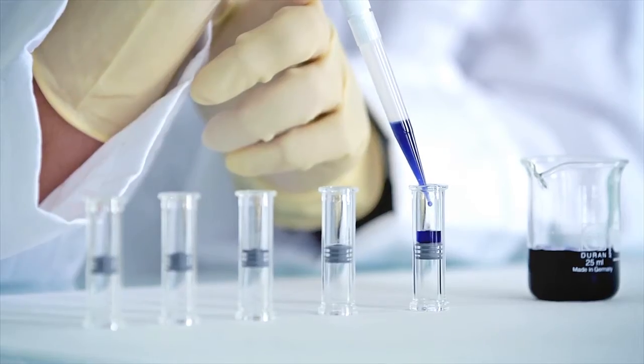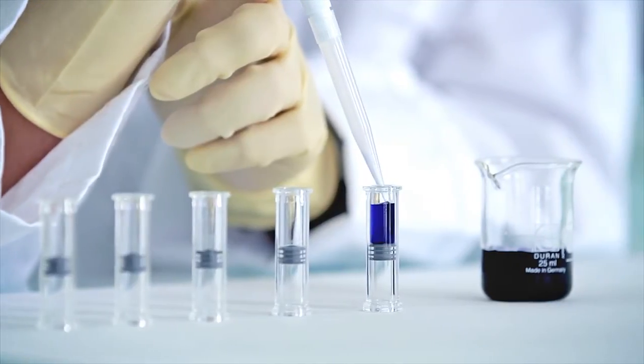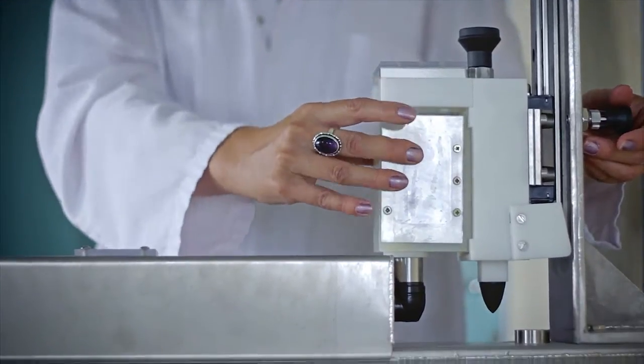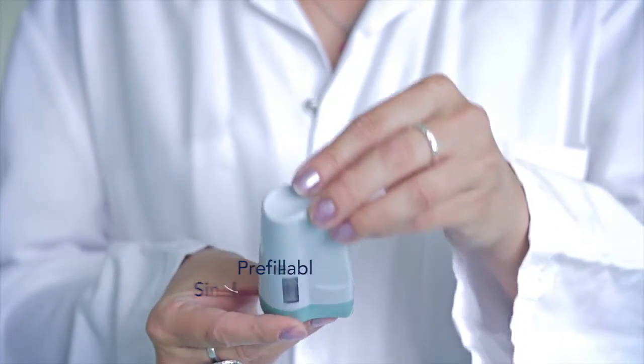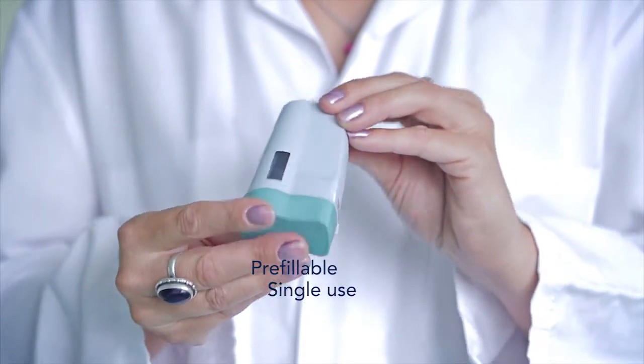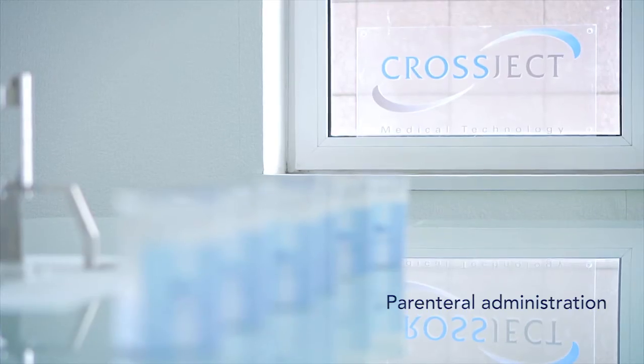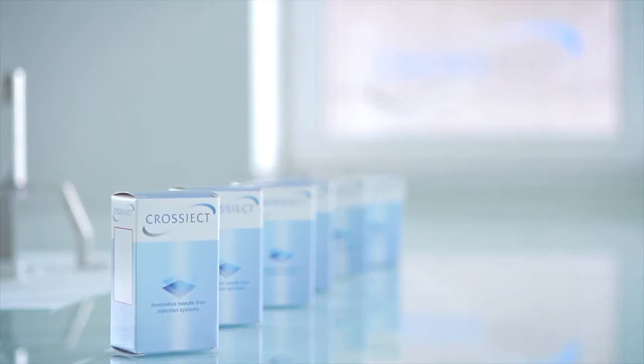Unlike other injection devices, Crossject's needle-free auto-injector does not look like a syringe. Its modular concept, pre-fillable and single use, makes it ready to use for parenteral administration of many drugs or vaccines through subcutaneous, intramuscular or intradermal routes.